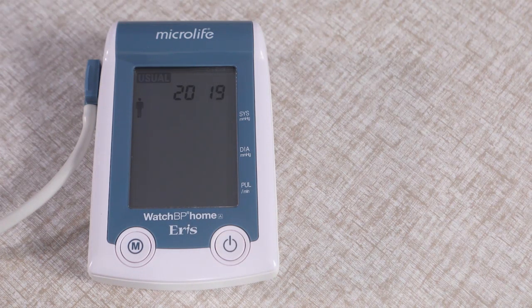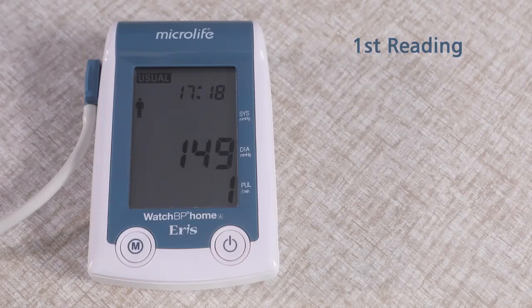Wait for 15 seconds. After 15 seconds, the cuff will start compressing. Then you will feel the pressure and then it will deflate with releasing pressure.